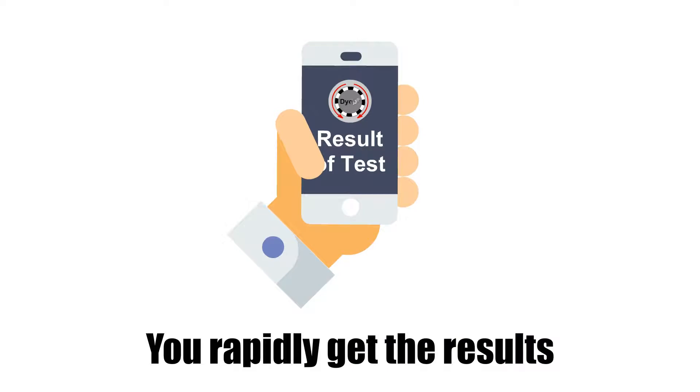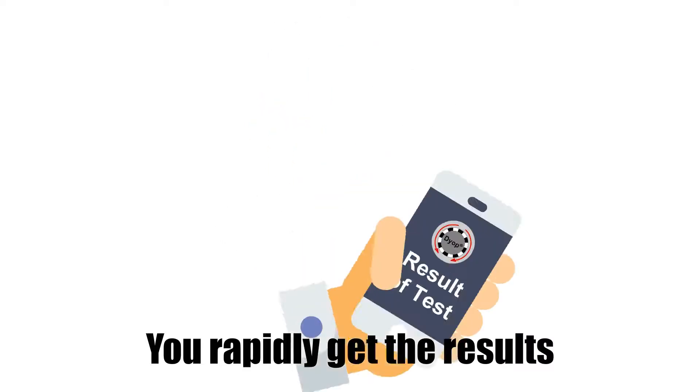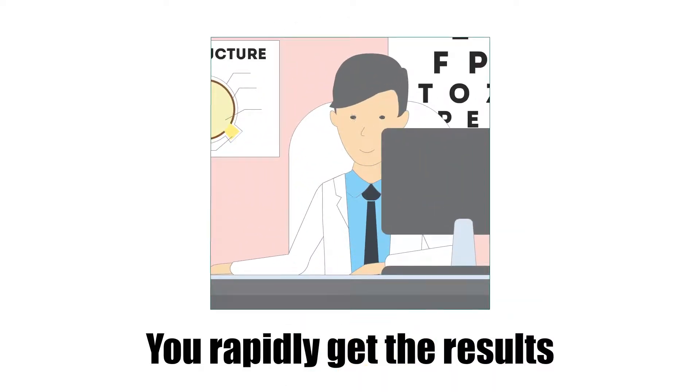Once the test is complete, the results will appear on your device and will indicate whether you need to consult your eye doctor.